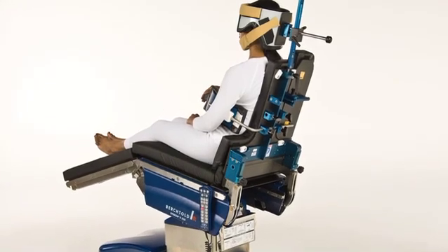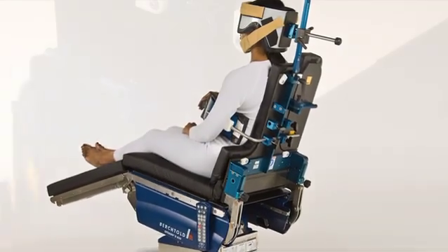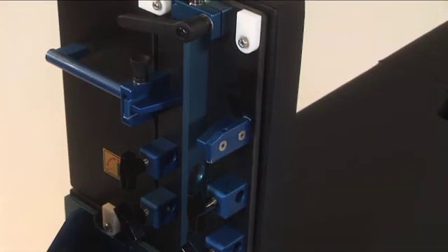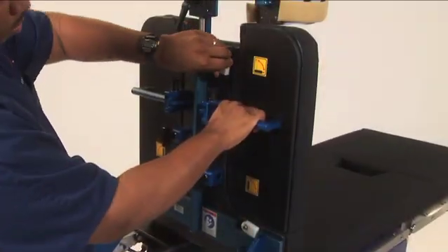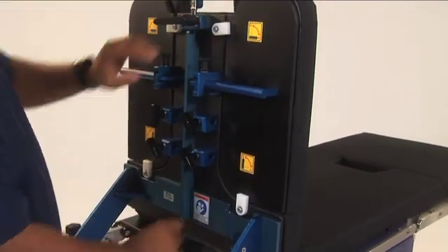You can now access and manipulate the patient's joint during surgery. To insert the panel once again, slide it onto the track and the panel will lock into place. Then turn the top and bottom panel latches to the locked positions.